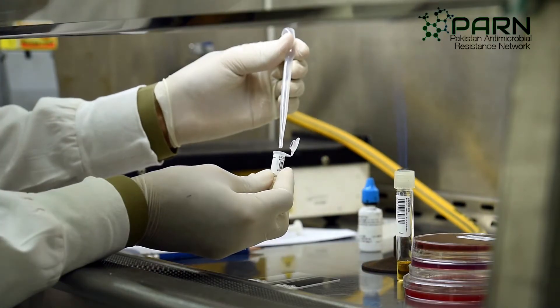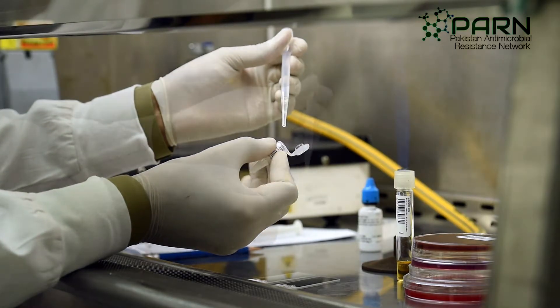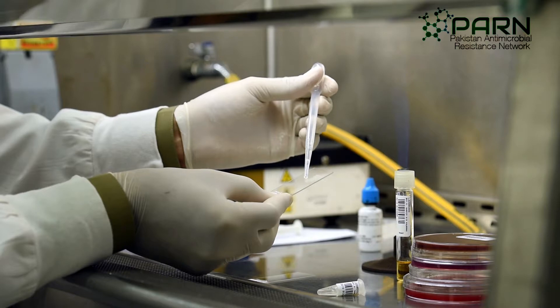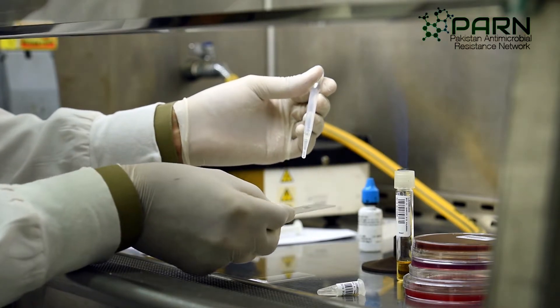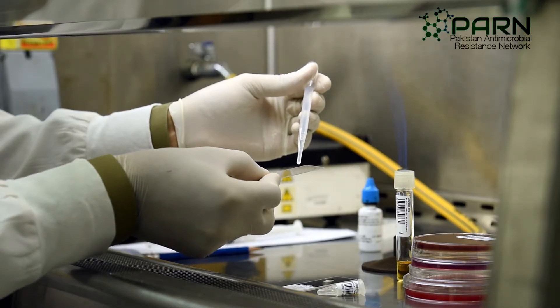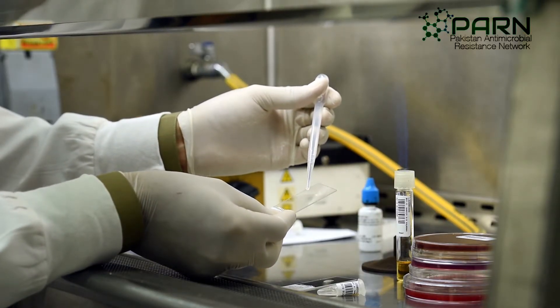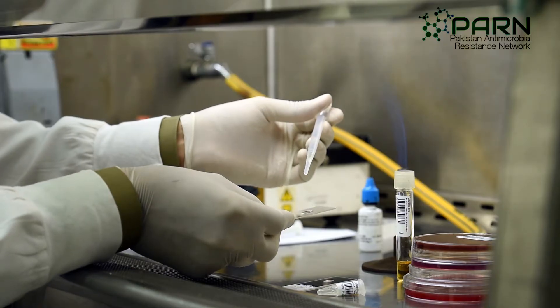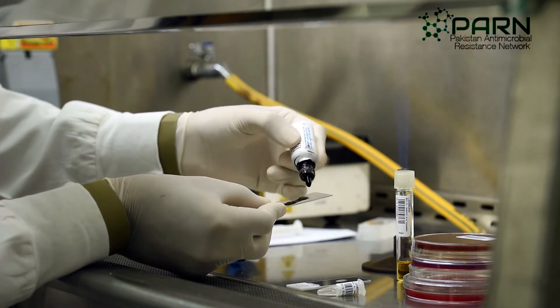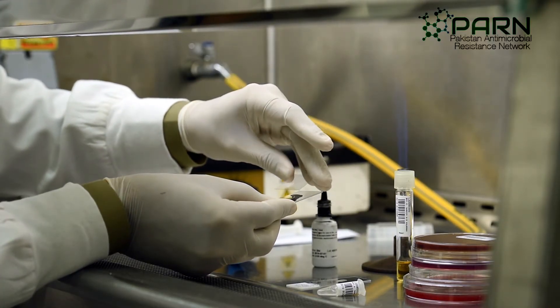For gram staining, add a specimen drop by drop on a clean glass slide, forming a large drop. Do not spread the smear. For India ink preparation, a drop of CSF is placed on a glass slide followed by a drop of India ink. Place the cover slip, avoiding the formation of air bubbles.